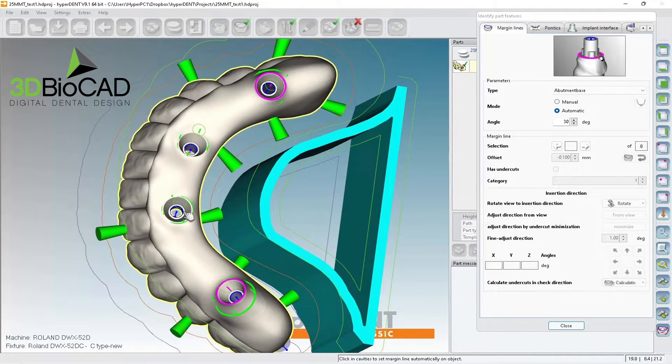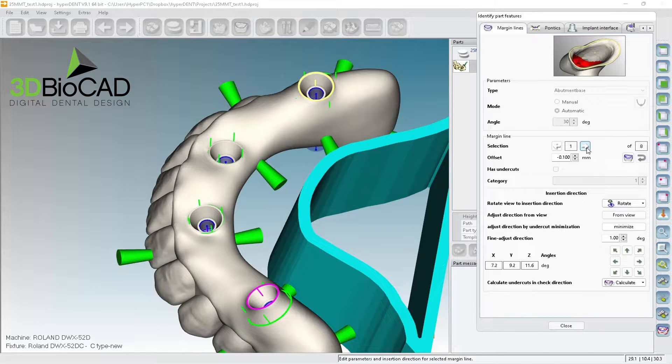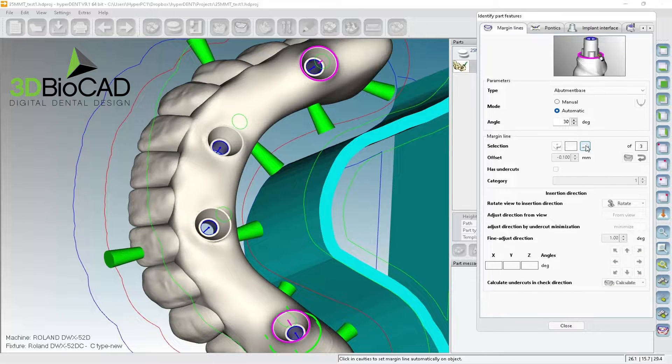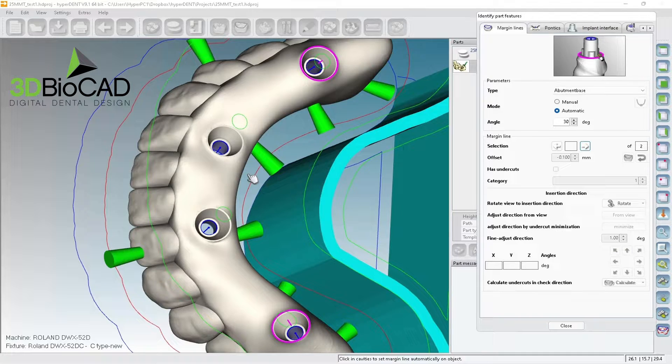These are some of the cases that don't have good integration. It says eight total. The pink connectors are good, so I'll delete the green ones — the green ones are not really needed. I'm on number two but I don't see any of them. I'll delete them one by one, and then I'll delete the hidden ones too. I'm basically setting everything up again from scratch.